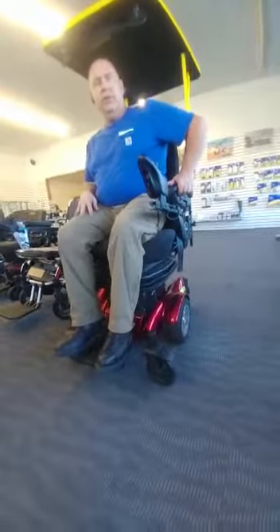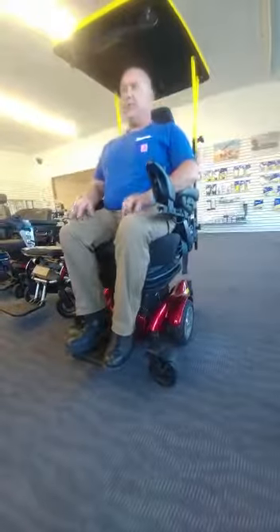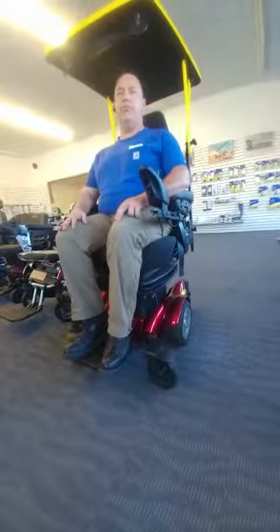The other option we have is the air-right suspension system. As you can see, the chair comes up and down — I'm going to activate that right now to show you. It rises up, and what I'm doing is setting my own position so that I'm comfortable. As I go over bumps, the chair takes the bumps, not the individual.